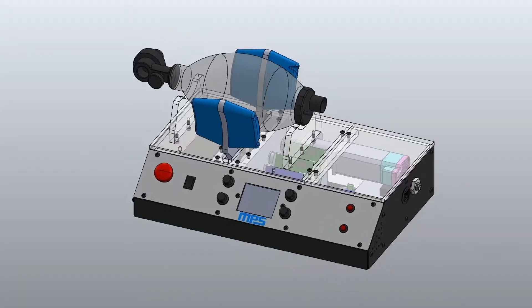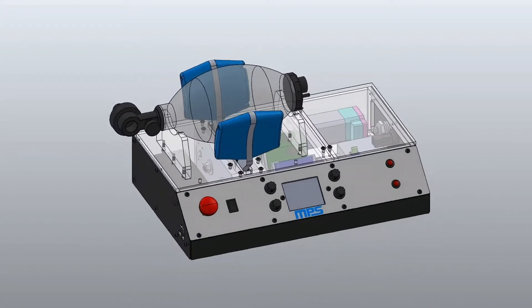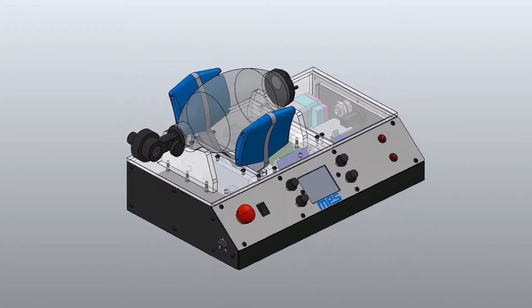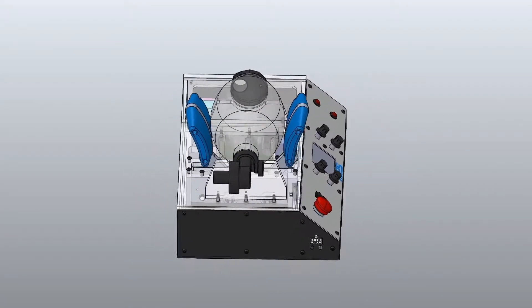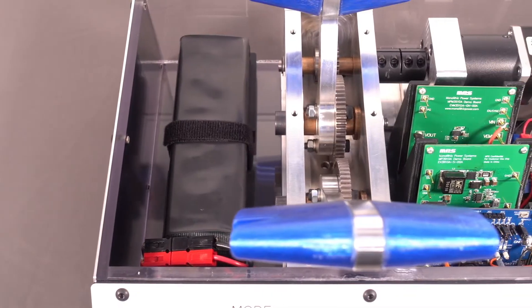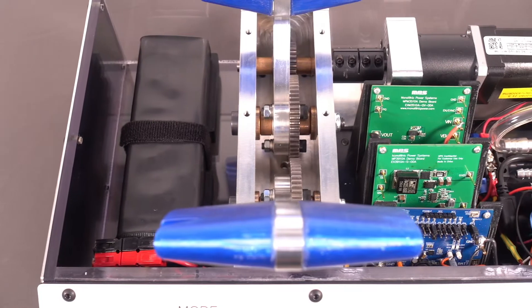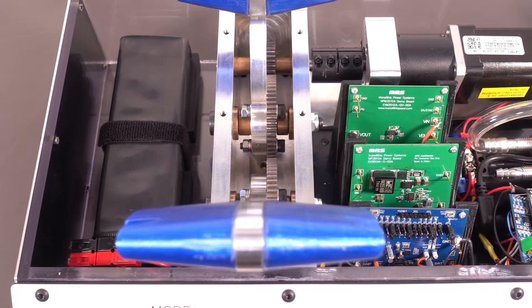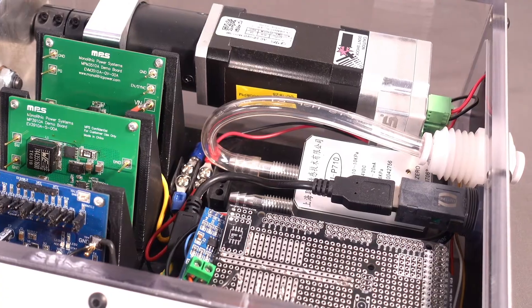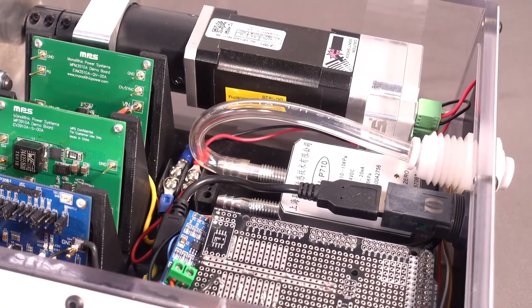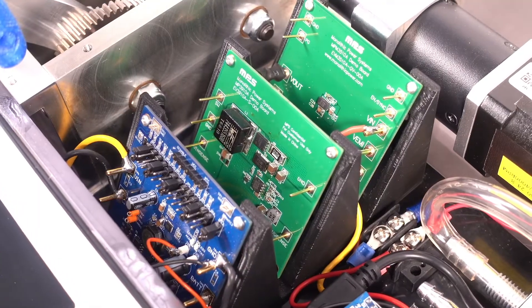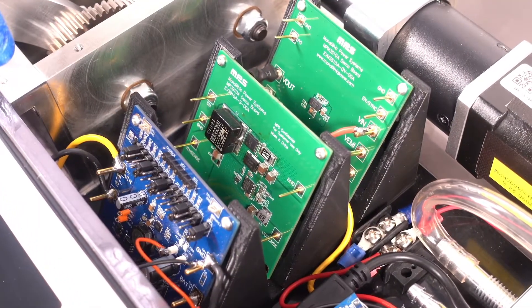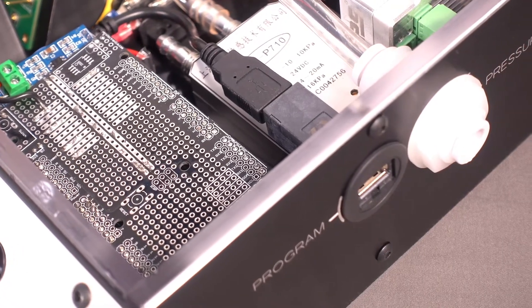This video will showcase the features of our MPS automated BVM system, which provides unique advantages over similar designs. MPS backup battery charging, power path management integration, robust voltage regulation, and smart motor implementation set our design apart, and each of these elements can benefit a variety of other types of systems and application designs.